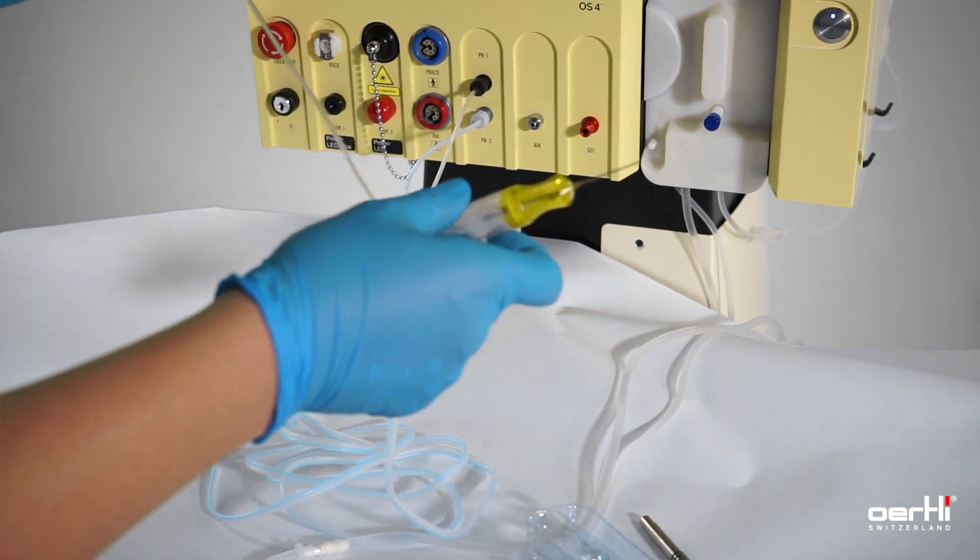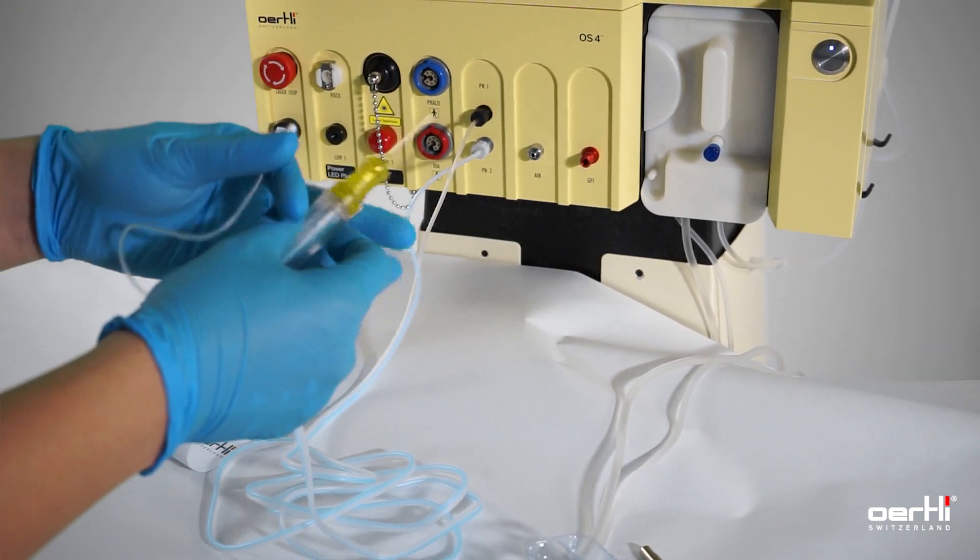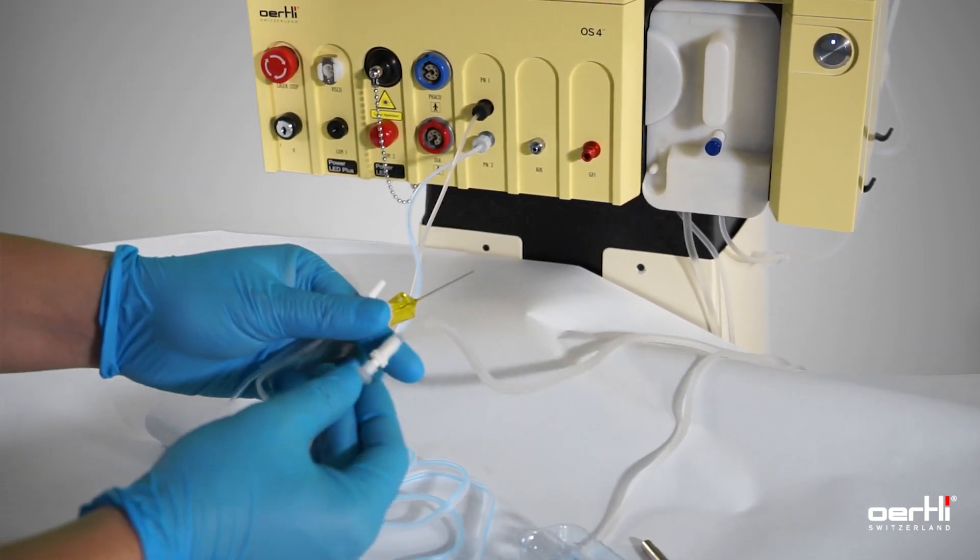Use the short tubing to attach the aspiration line.